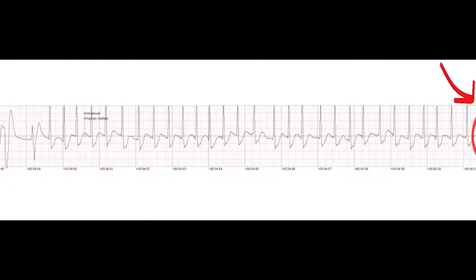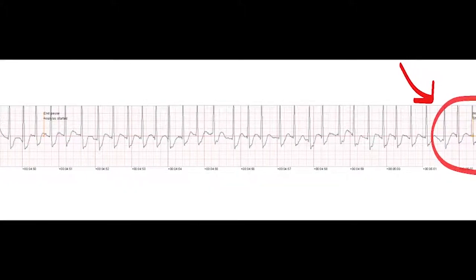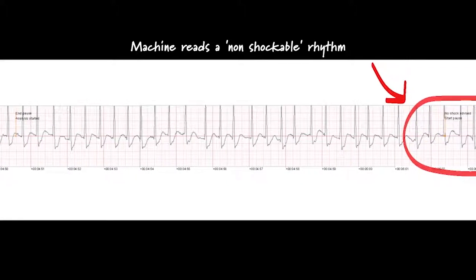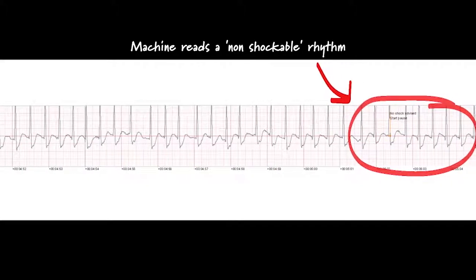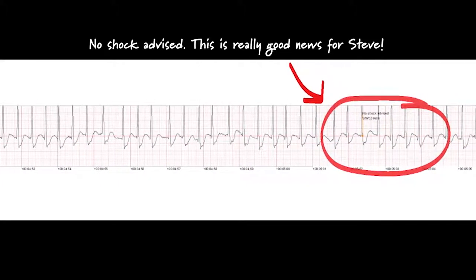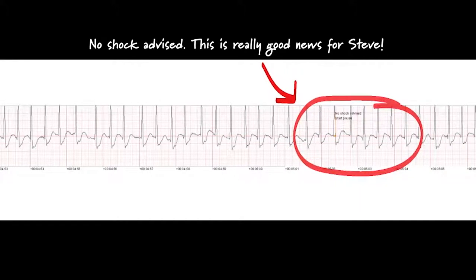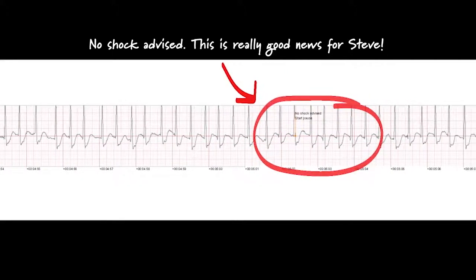No one should touch the patient. Analyzing. No one should touch the patient. Shock not advised. It is safe to touch the patient.